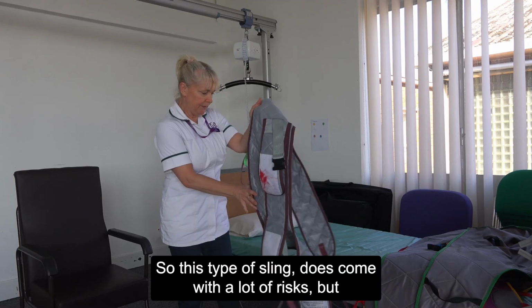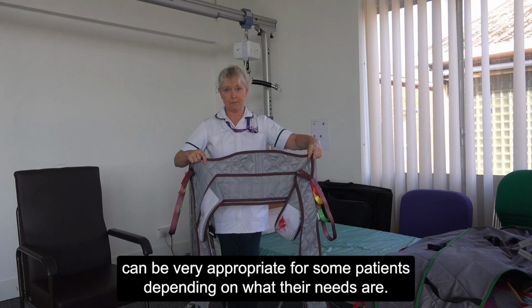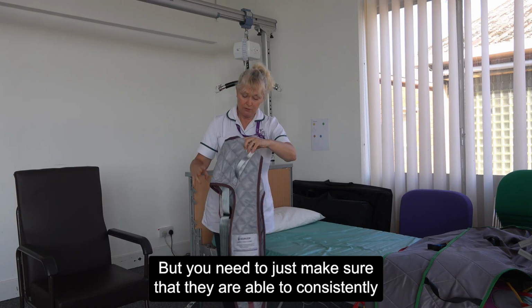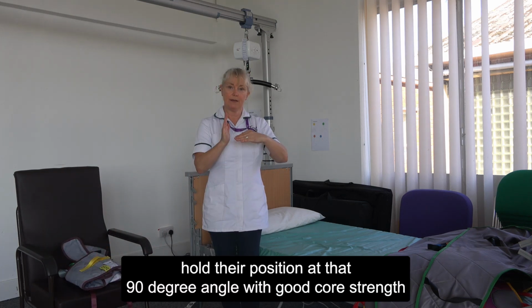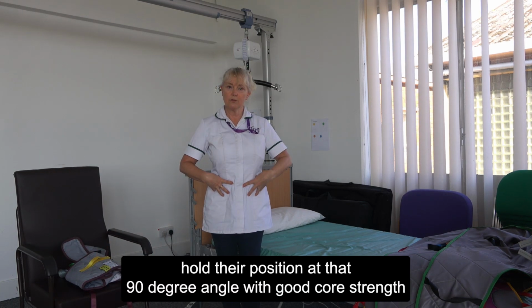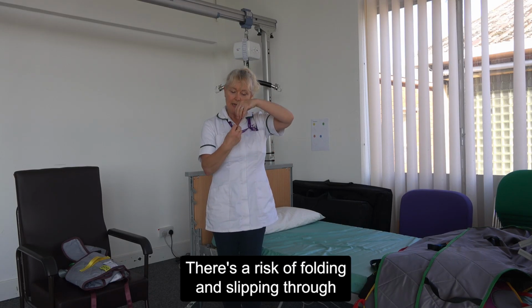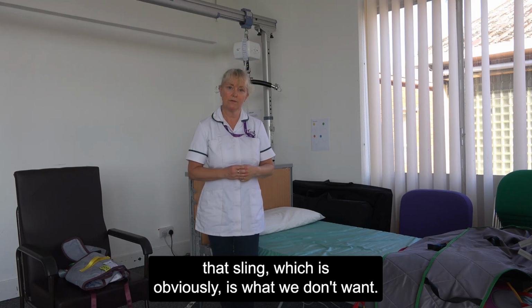This type of sling does come with a lot of risks, but can be very appropriate for some patients depending on what their needs are. But you need to make sure that they are able to consistently hold their position at that 90-degree angle with good core strength. If they don't have that core strength, there's a risk of folding and slipping through that sling, which obviously is what we don't want.